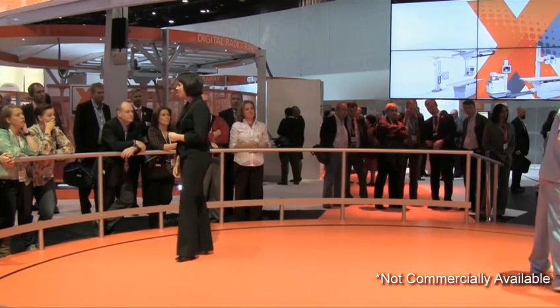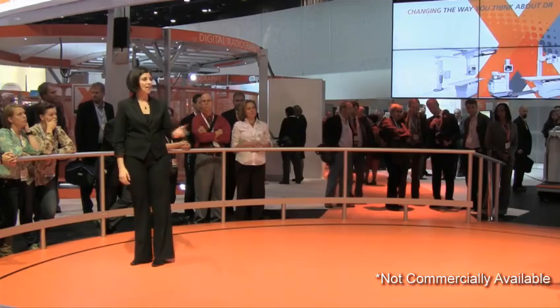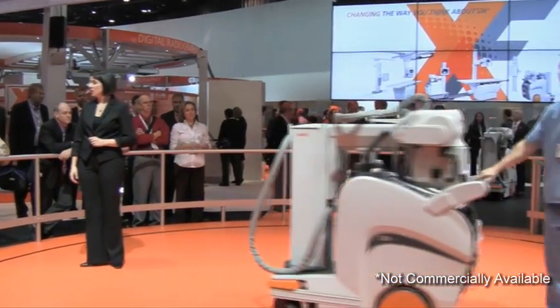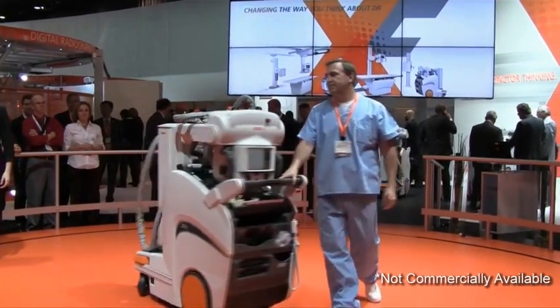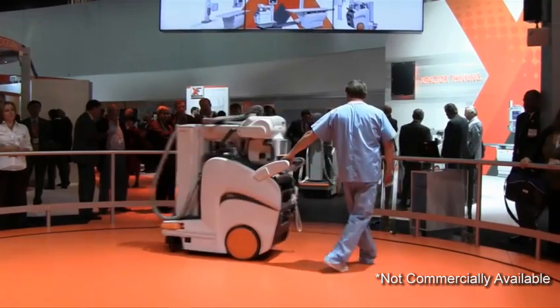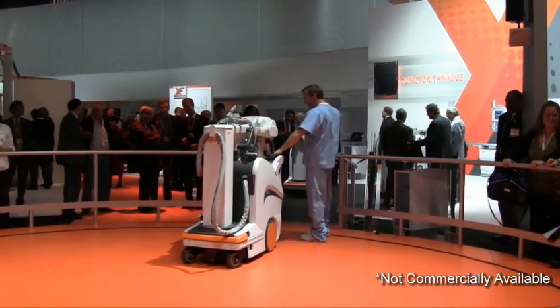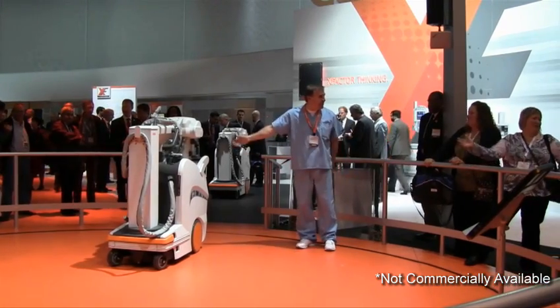Compatible, flexible, scalable — that's the X-Factor. Now we would like to invite you to come take a closer look and offer us your initial thoughts and feedback. If anybody would like to take a test drive, it's very cool. You can go to our entrance here and Marty can help you with the test drive and answer any questions. We also have two units in the back with booth staffers that can answer questions and give you a demo as well. So who's up?